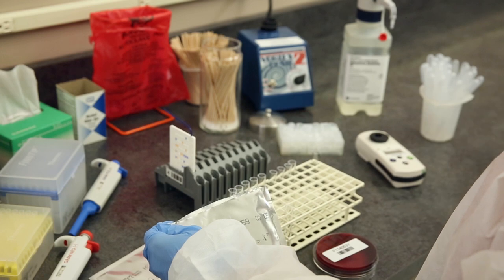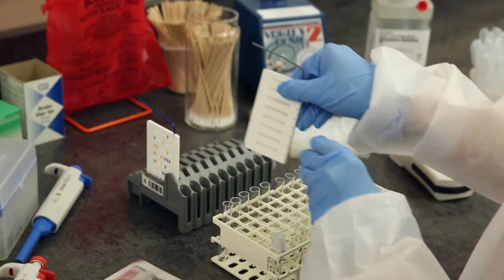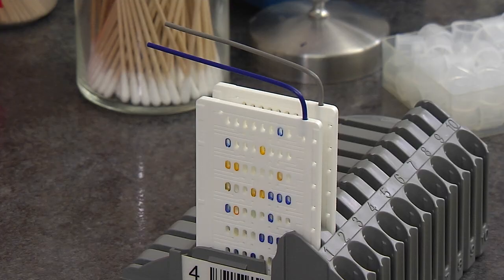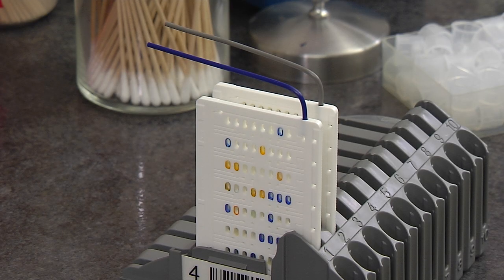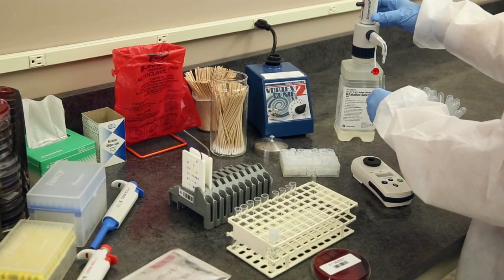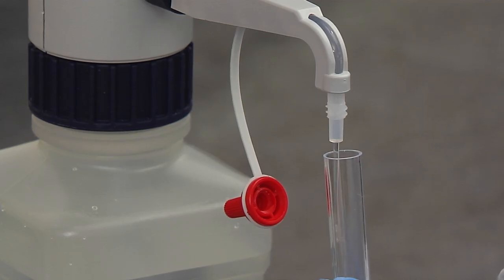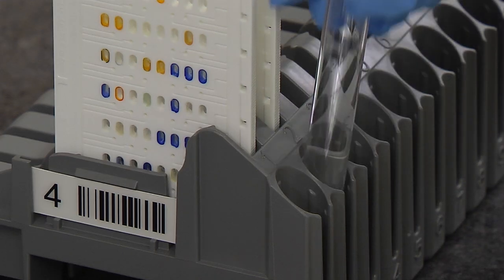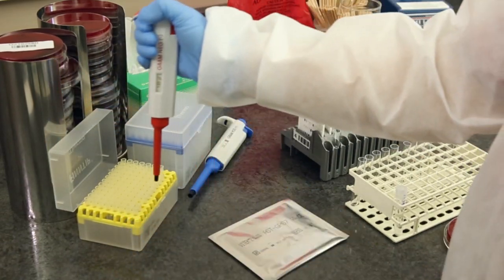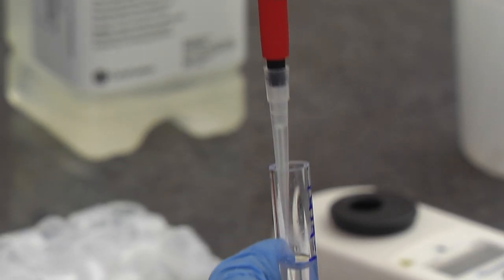Since we are also setting up susceptibilities on this isolate, remove the AST card from its foil pouch. Place the AST card in the next slot of the cassette to the right of the ID card, standing on end with the transfer tube pointed away from you. Using the dispense set, dispense 3.0 mL of saline into another polystyrene tube and place it in front of the AST card. Since this is a gram-negative AST card, use the 145 µL pipettor to transfer an aliquot of the organism suspension to the saline tube.